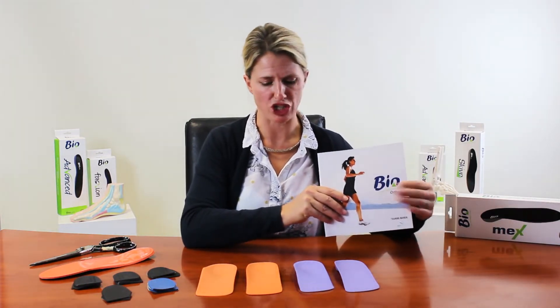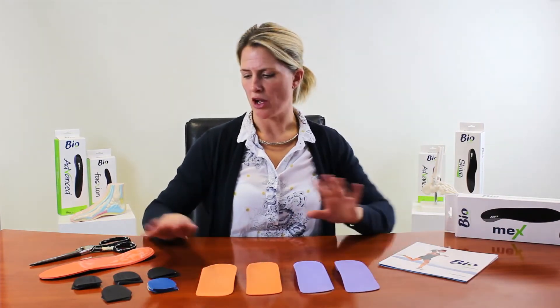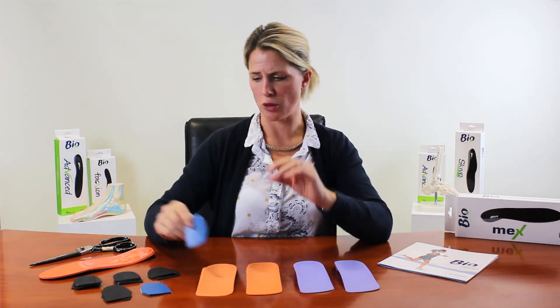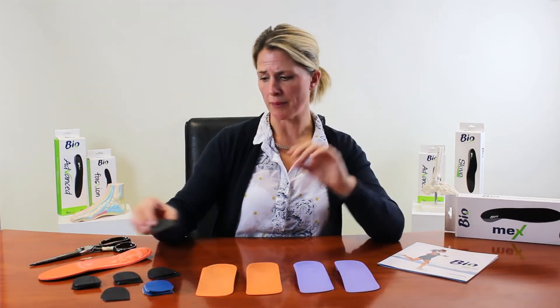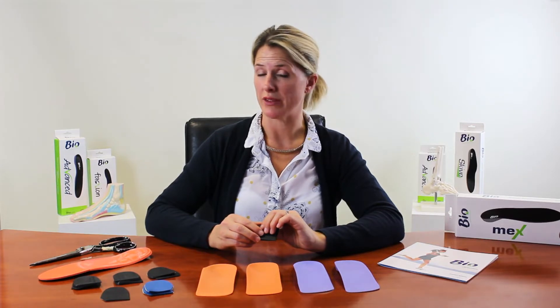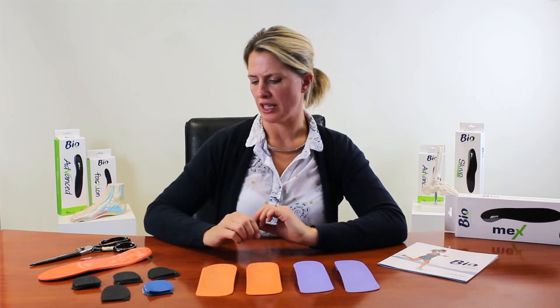These are basic shells but they come in a pack with different adaptations. You get little heel cushions for more cushioning underneath the heel, and five-millimetre heel lifts. You can keep additions from previous packs to double up and give yourself more options to play around with.